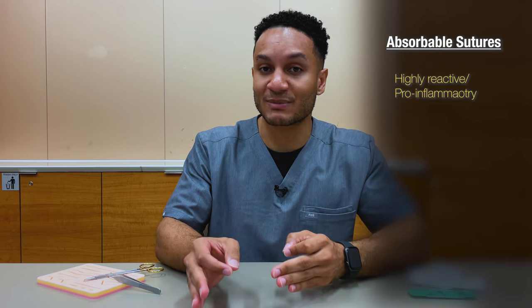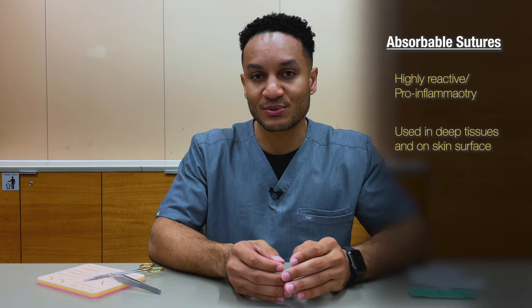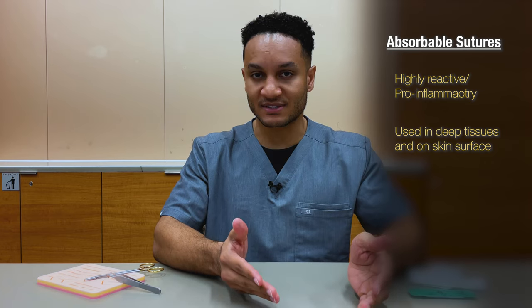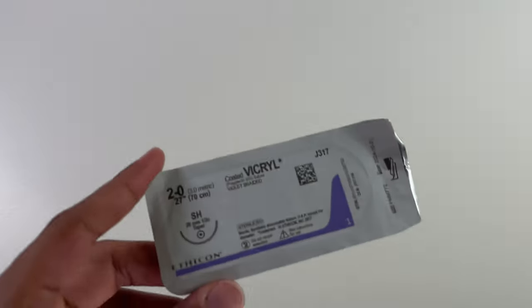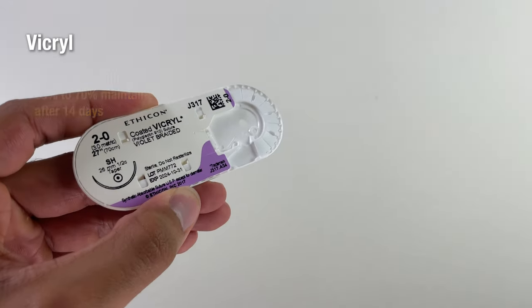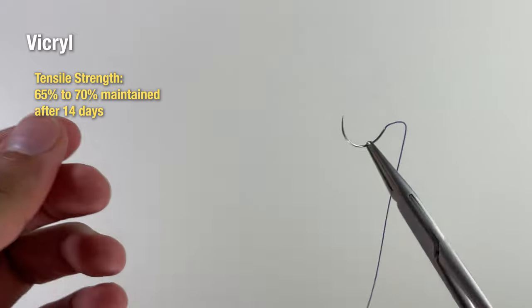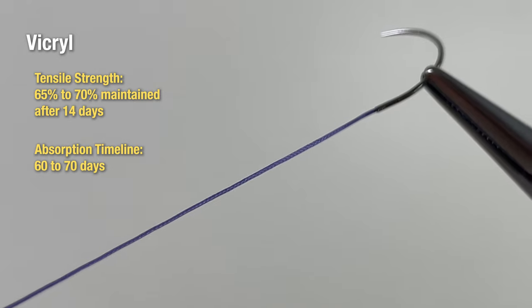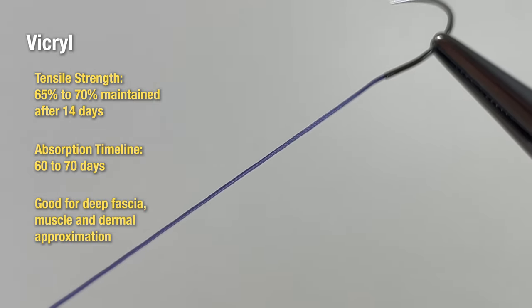In general there are absorbable and non-absorbable sutures. Absorbable sutures tend to be more reactive to tissues and pro-inflammatory, which can actually be good for wound healing if placed within deeper tissues. They should be used in deeper tissues when doing a multi-layered wound closure and can also be used on the surface of the skin when removing sutures is impractical. The classic and most common absorbable suture is vicryl, which is coated with hydrophobic copolymers that prolong its life. 65 to 70 percent of tensile strength is maintained after 14 days and it is completely absorbed after 60 to 70 days. Vicryl sutures are great for approximating deep tissues such as fascia and muscle.